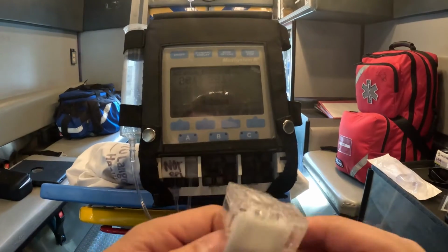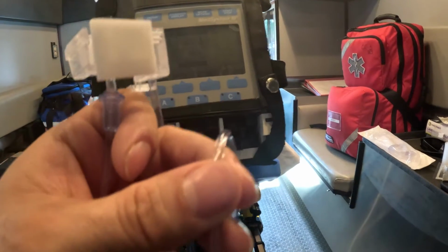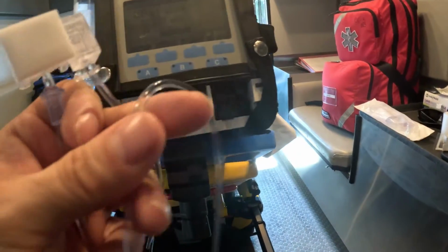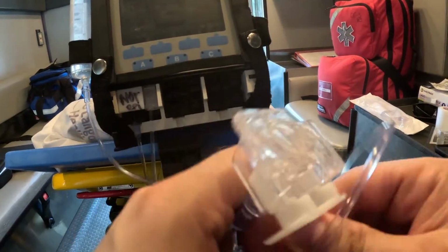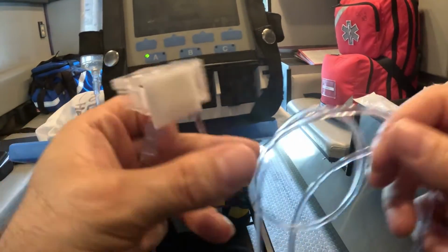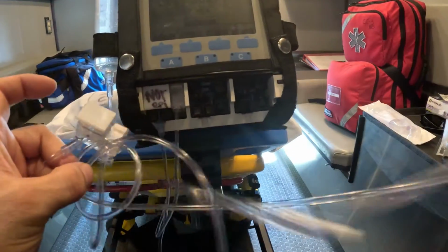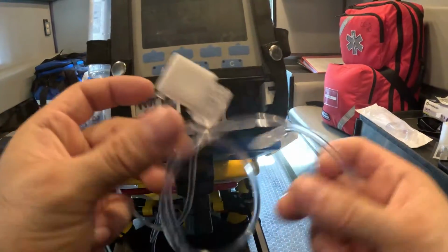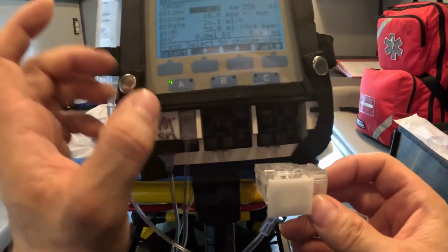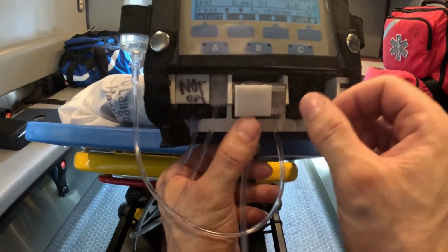The next thing, this is what we're gonna do. I'm going to go ahead now and show you how to insert this cassette into the recess so that you have no alarms, it doesn't beep, it doesn't give you any issues. So we already pre-flushed it, so I know there's no air bubbles in it. Untangle everything. So what you want to do is as follows. We're in channel B, nothing is infusing. So you're gonna put this in a 45-degree angle, and I'm not pushing this in just yet.